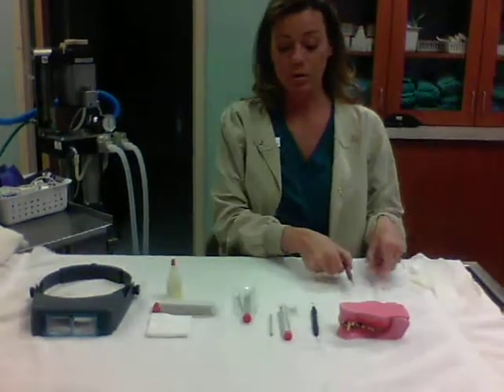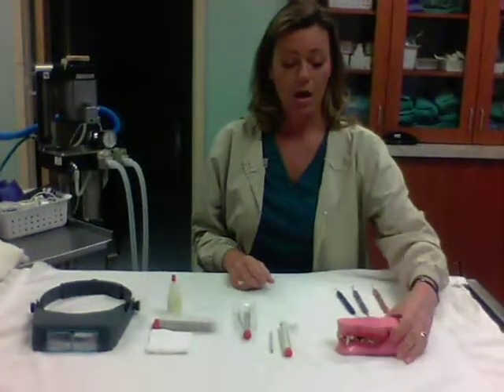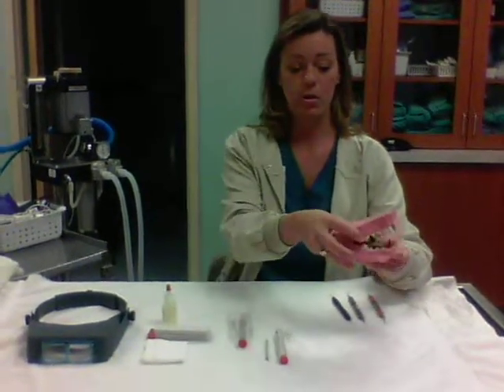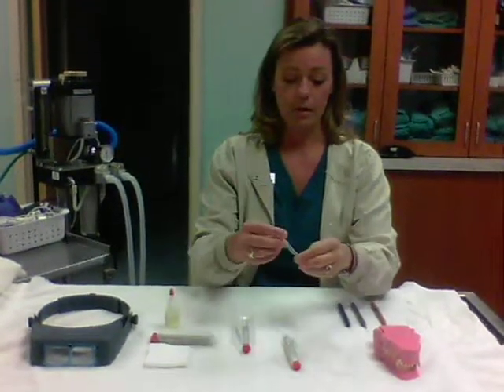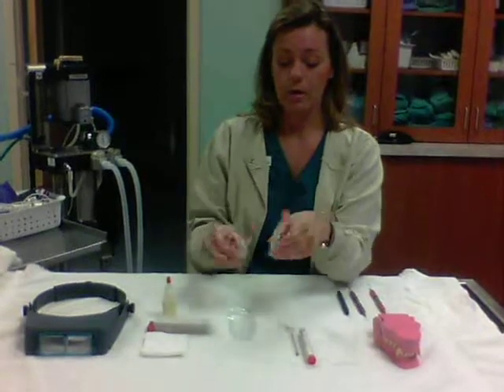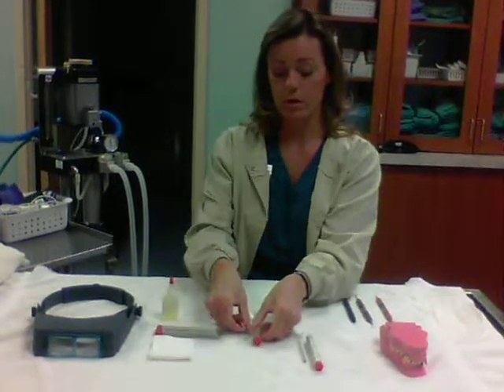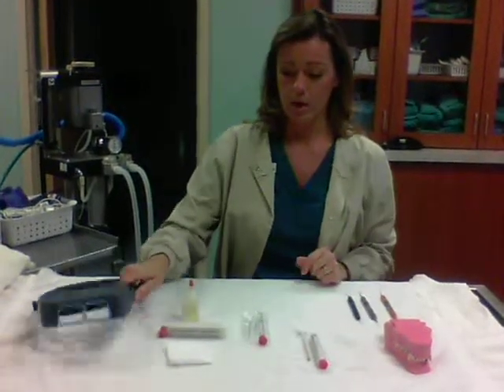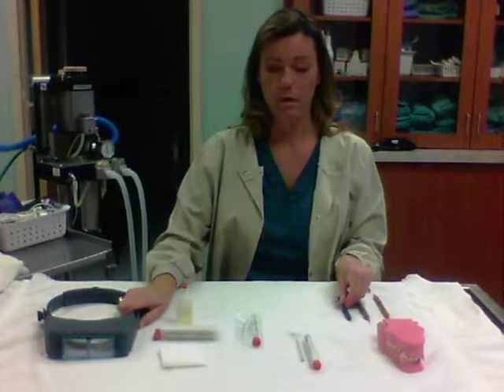I have assembled all the necessary supplies, so I'm going to go through what we have here that we need to use today. For display and use purposes, I've got a dog dental mouth to show how to use the probe on the teeth. We have a clear plastic testing stick, and two types of sharpening stones: the Arkansas Square Flat Sharpening Stone and the Arkansas Conical Stone. I've also got some gauze, some stone oil, and a head loop for up-close visual of the areas that we're sharpening.